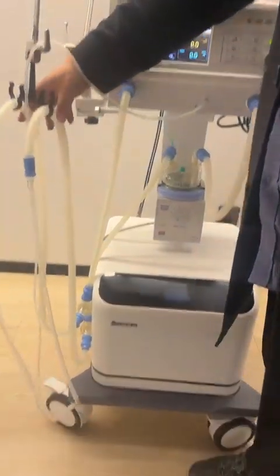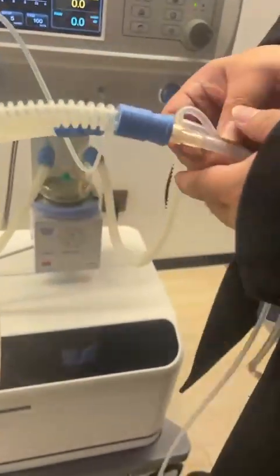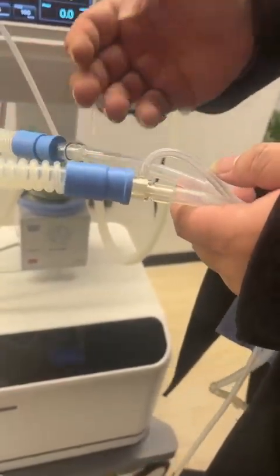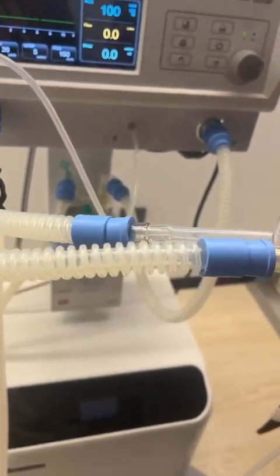And then let's see about the spare parts. So here the first one is the breathing circuit. And for the standard, we will give you the reusable one. And this one is made of silicone. And it can be cleaned at 134 degrees.